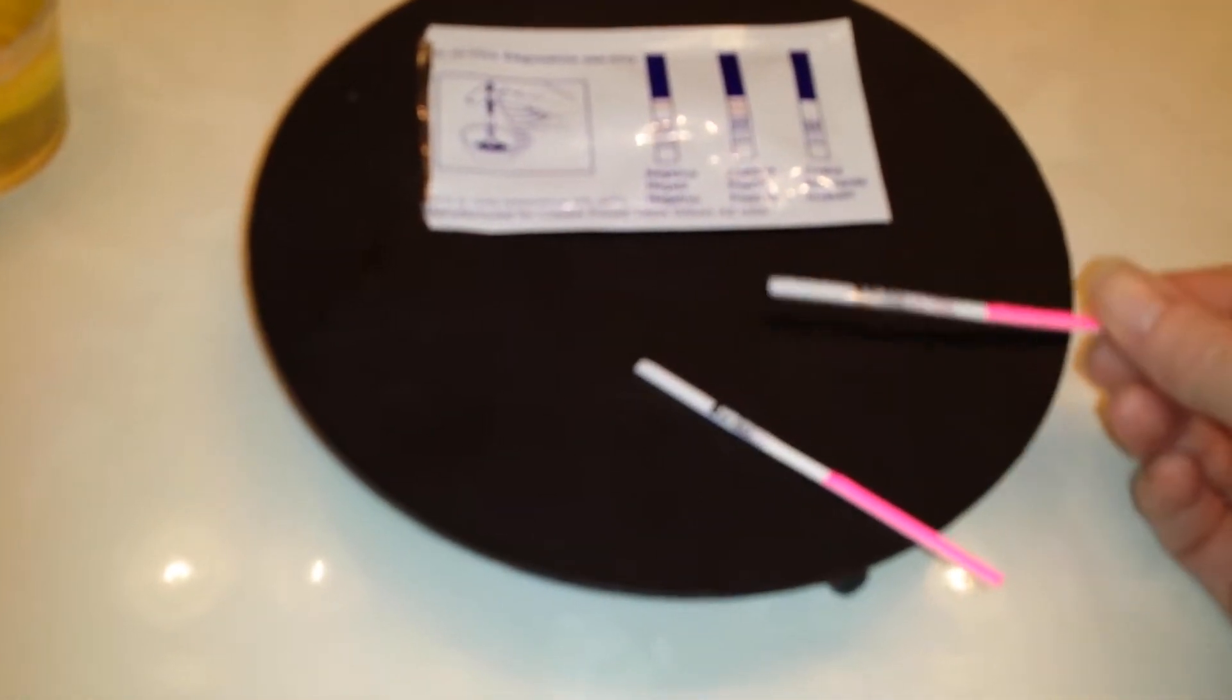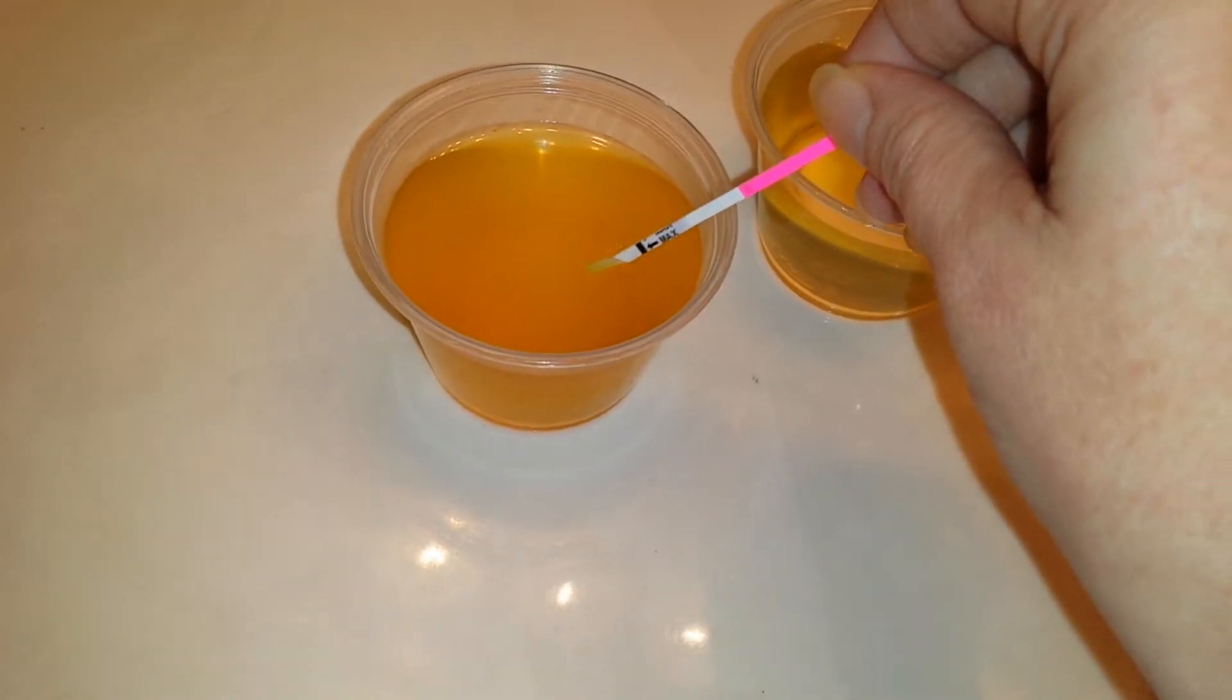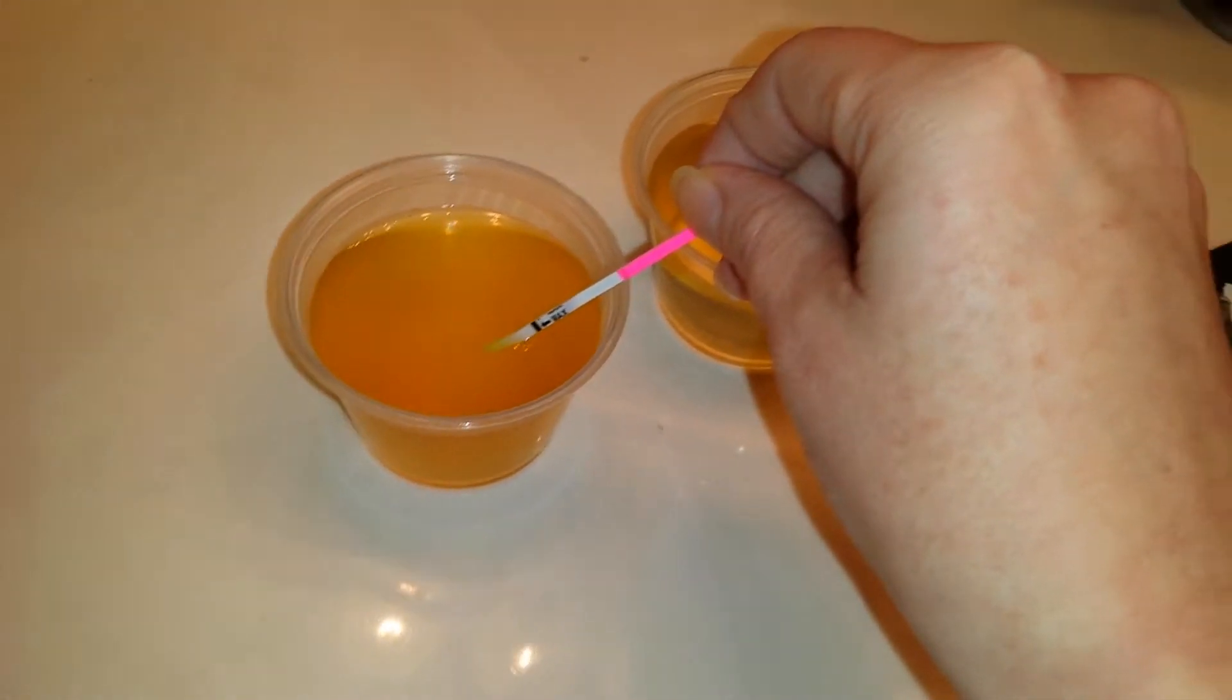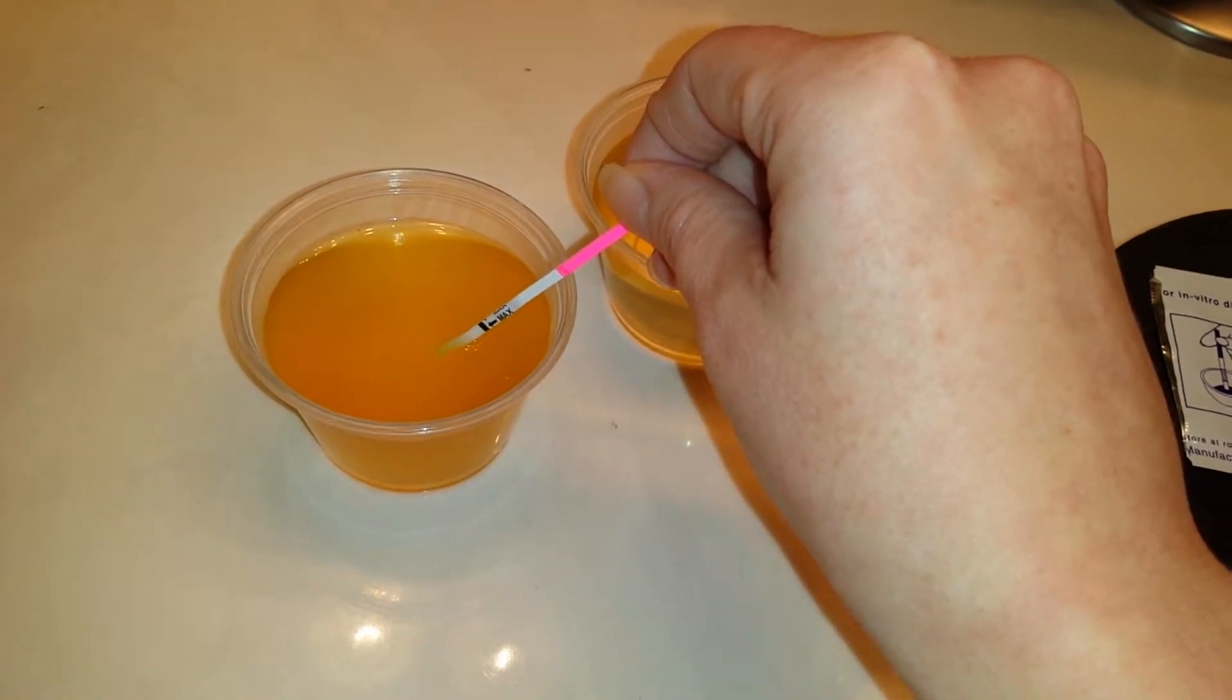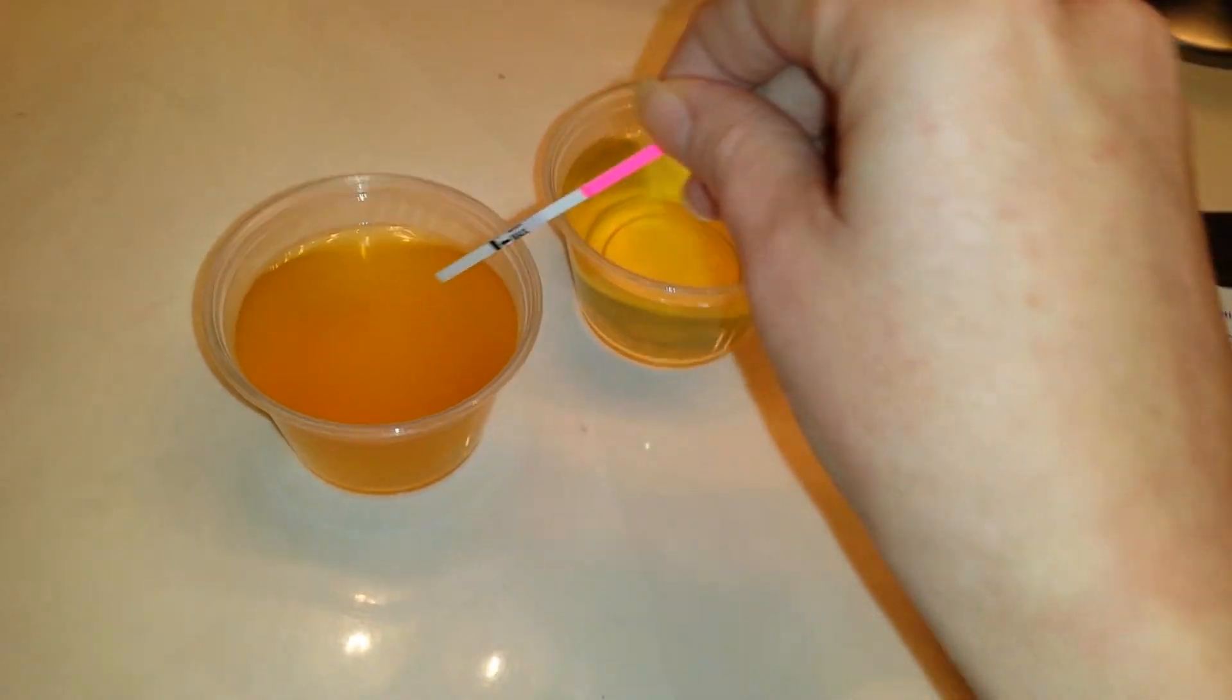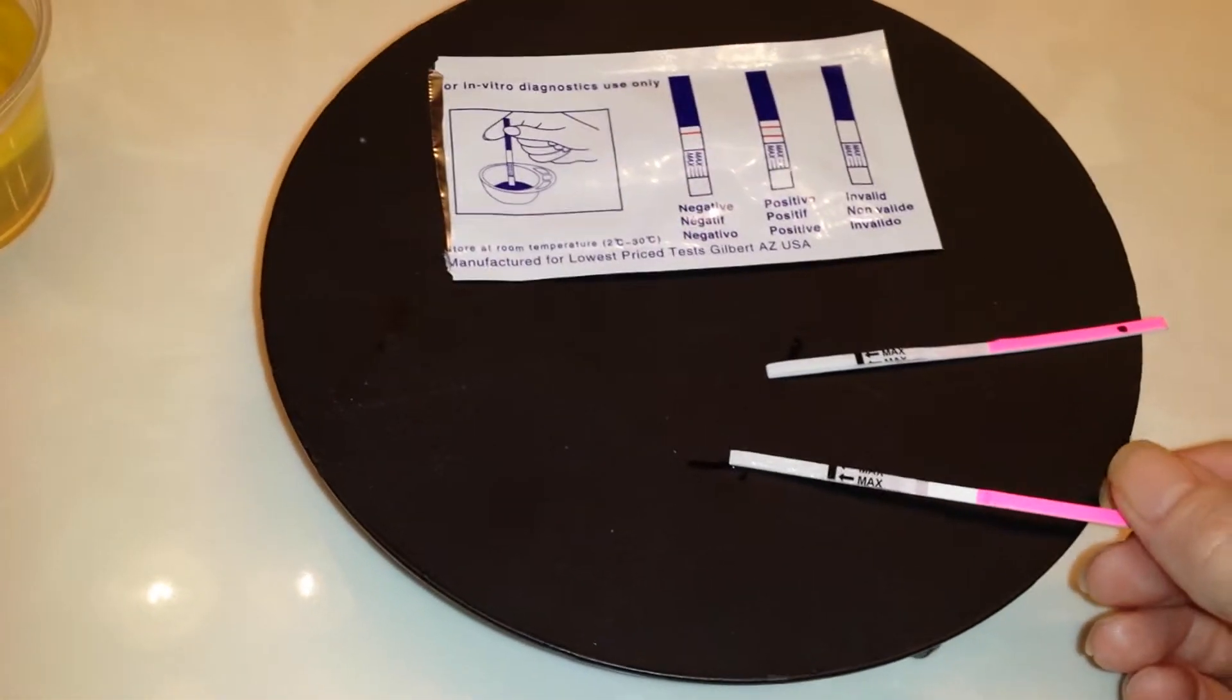Okay, so that is the diluted one and let's do the concentrated one.